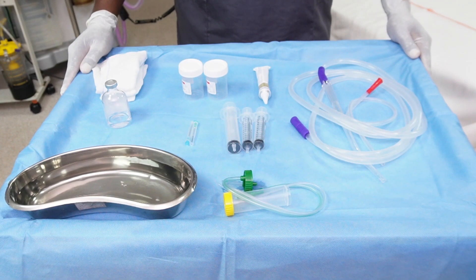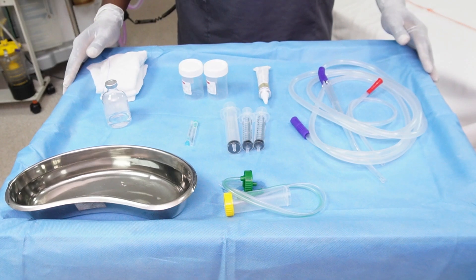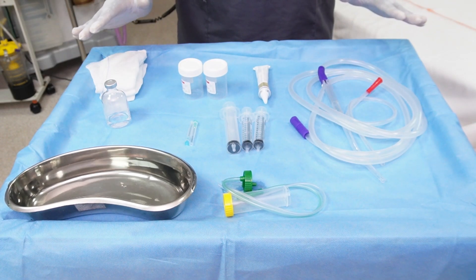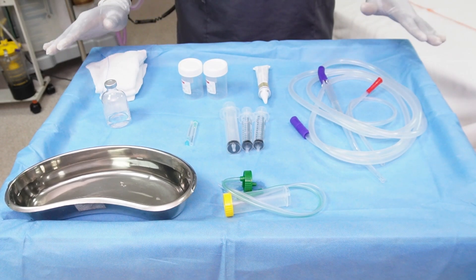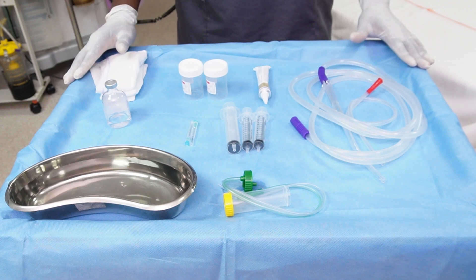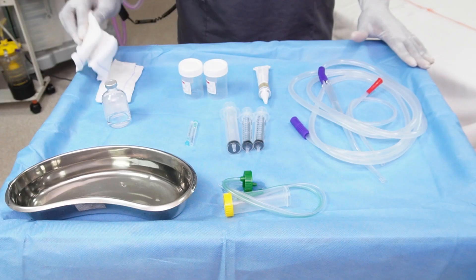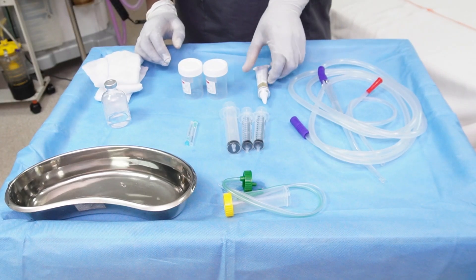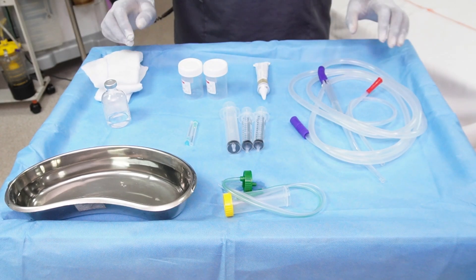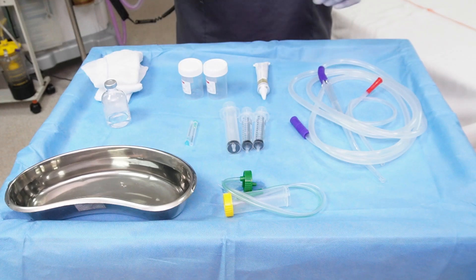Coming to the trolley — you will need sterile disposables. These are the things which the one assisting in the bronchoscopy procedure will have on the trolley. You will need assorted gauzes and lubricating jelly, which is applied to the bronchoscope as it goes inside the nose or the mouth.